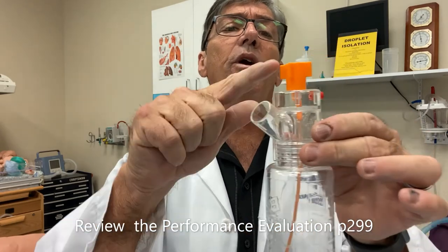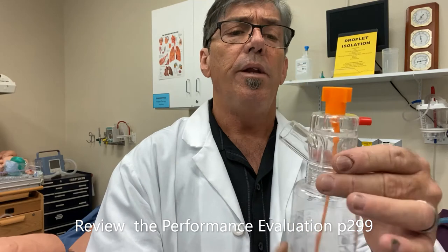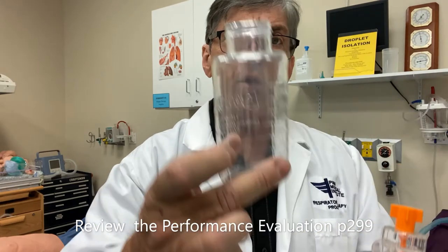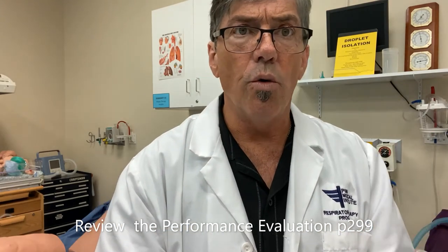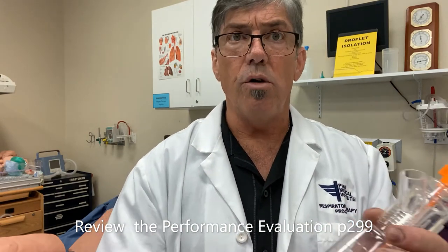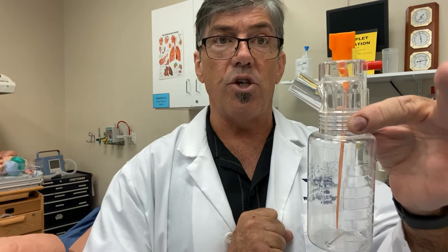This one is a sealed system. You connect up the flow meter here and use a blender to set your FiO2 to whatever the physician orders. The Hope Nebulizer unscrews this way and medication can be inserted in the container. The physician would order how much bronchodilator in milligrams per hour, or a total dose. Once you have that order, you can use the Hope package insert to help mix saline with, in this case, albuterol, to get the concentration the physician has ordered.